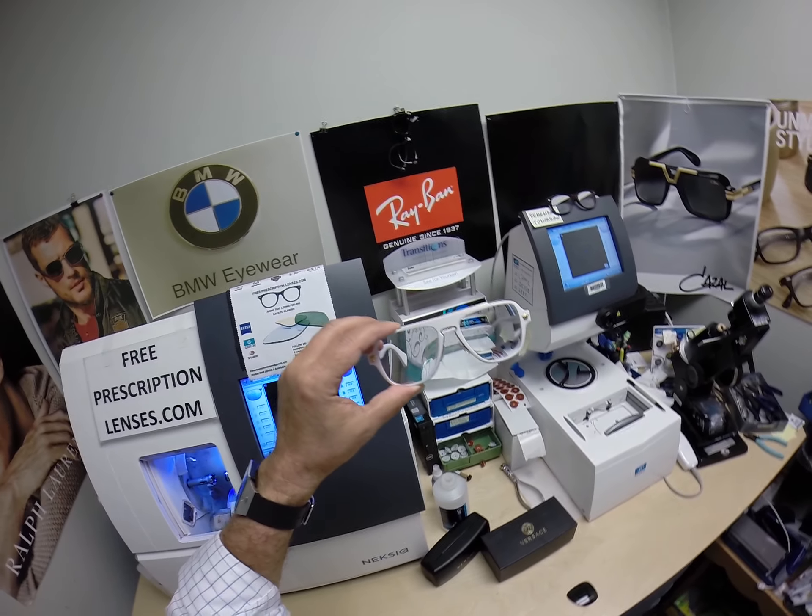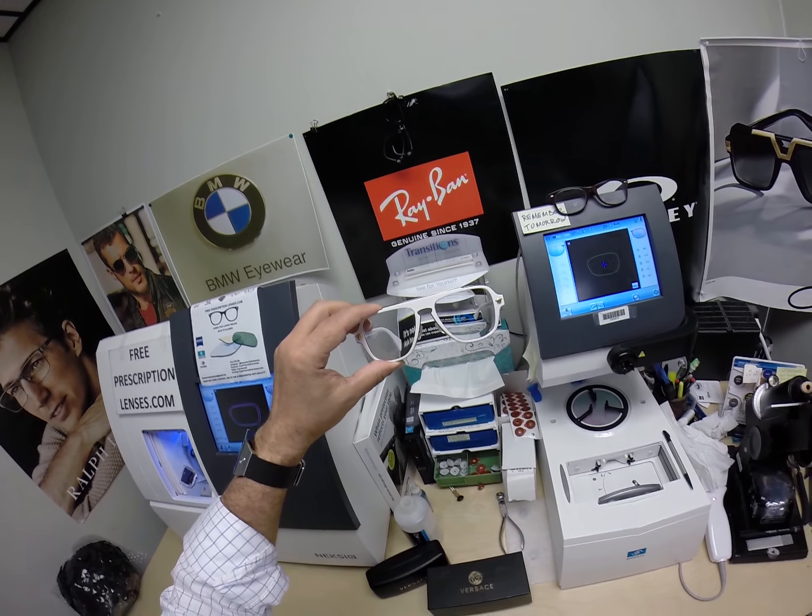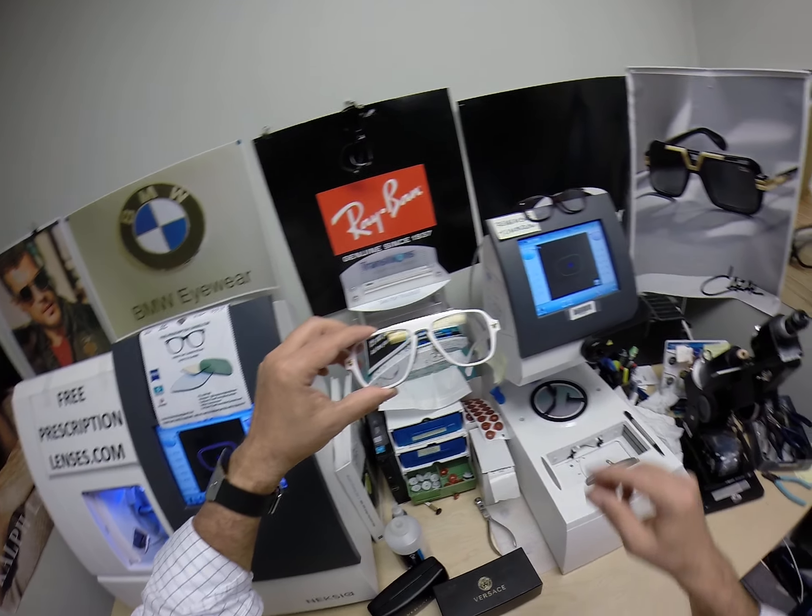As you can see, it takes about 30 to 45 seconds for it to darken. A little bit longer when you come back inside — 45 seconds to a minute, maybe a minute fifteen.